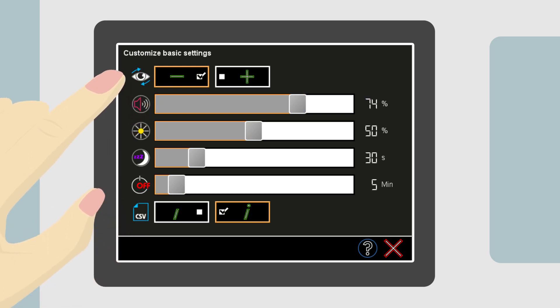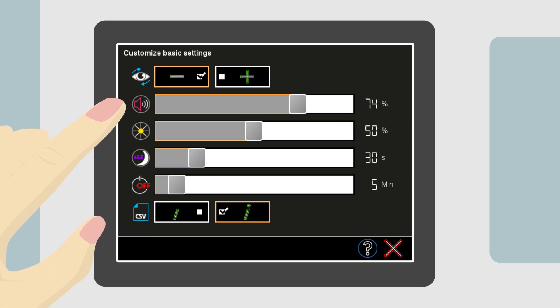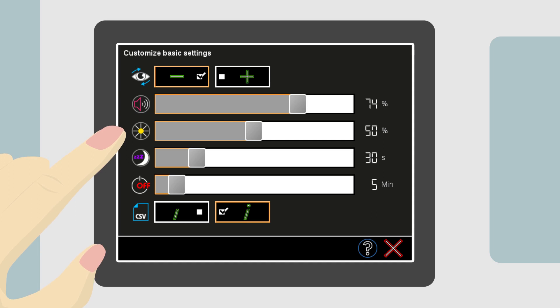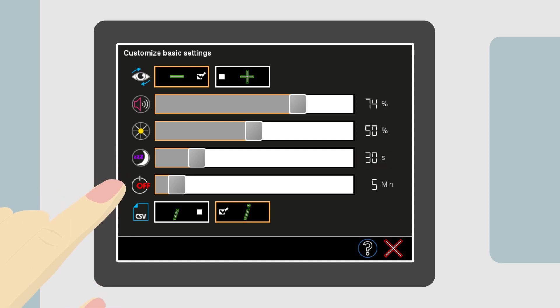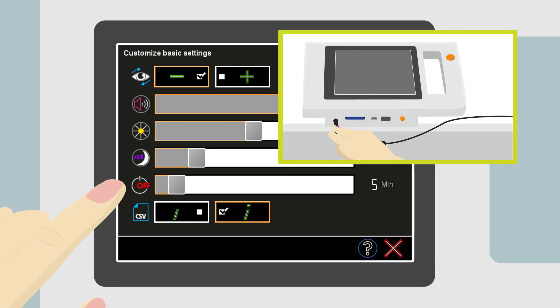This is used to adjust the device operating settings like screensaver and automatic shutoff timers. The top line is the cylinder value — usually this is left on the minus sign. Next is the volume of the warble sound, followed by the brightness of the screen adjustment, and then the screensaver timer. The device arrives with a default setting of 30 seconds, meaning the screen will go blank after 30 seconds of non-use. Next is the automatic shutoff timer, with a default setting of 5 minutes — the device will automatically shut itself off after 5 minutes of non-use. The automatic shutoff timer is deactivated when the power supply is connected to the S12 device.